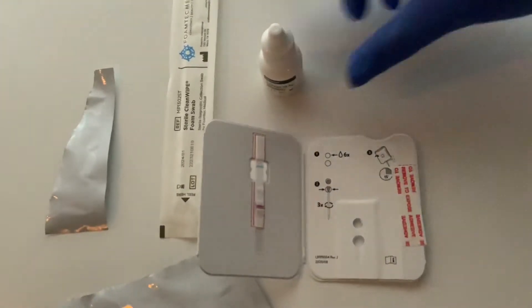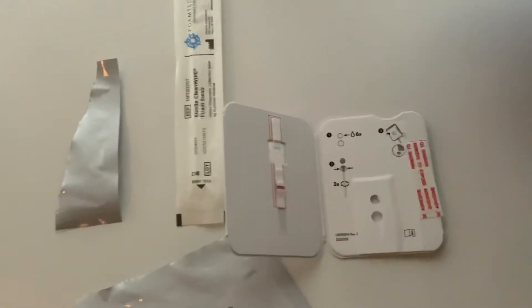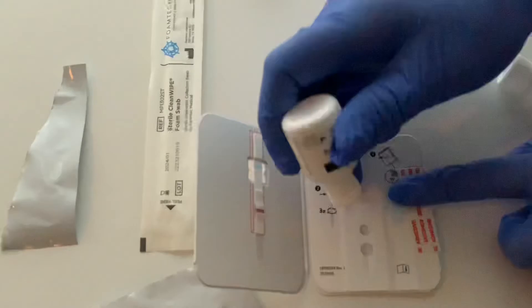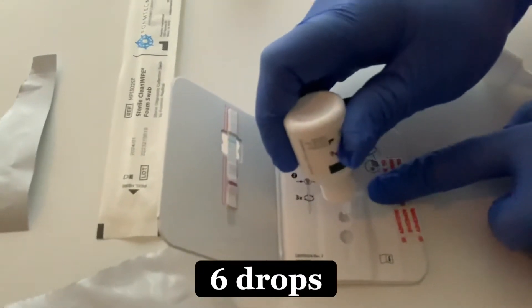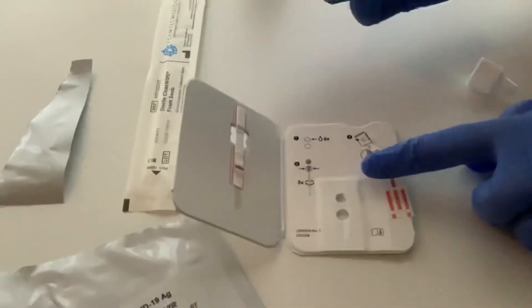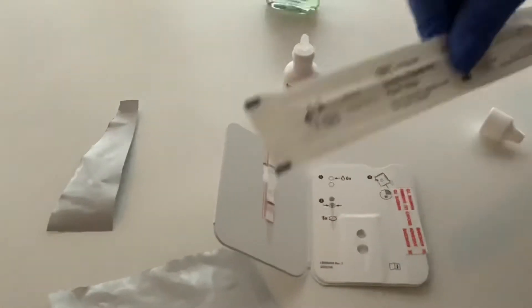You're going to see the wells right here. Grab your solution that it comes with and gently put six drops in the top well. Make sure not to contaminate it with the drop. Be careful not to touch the dropper with the paper.